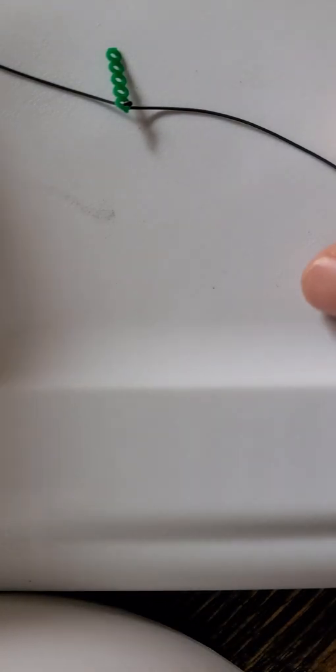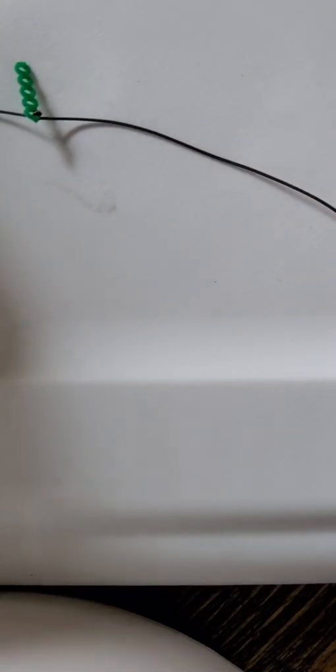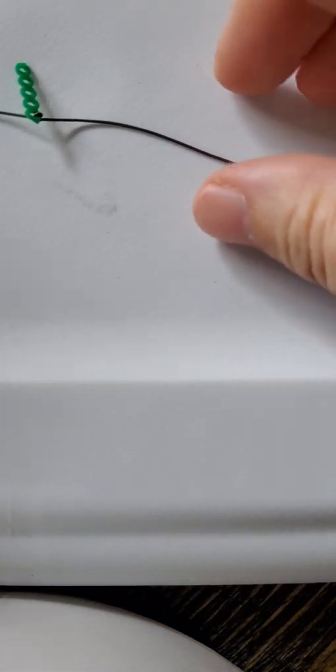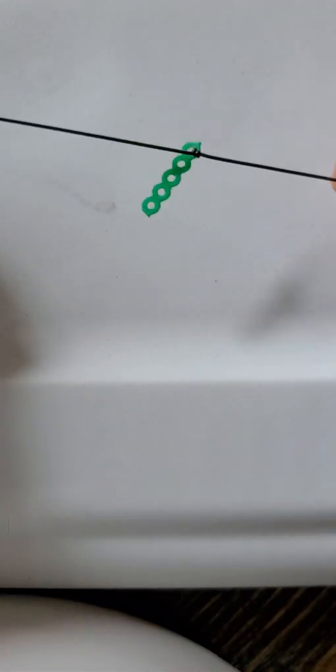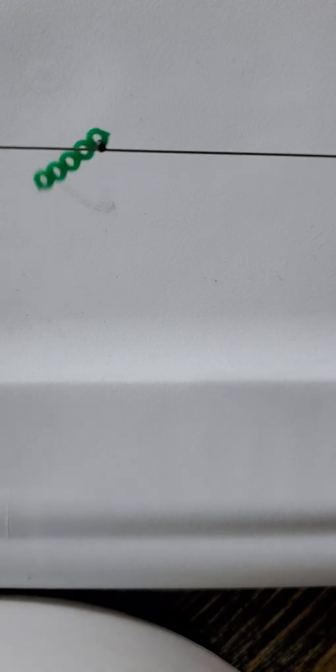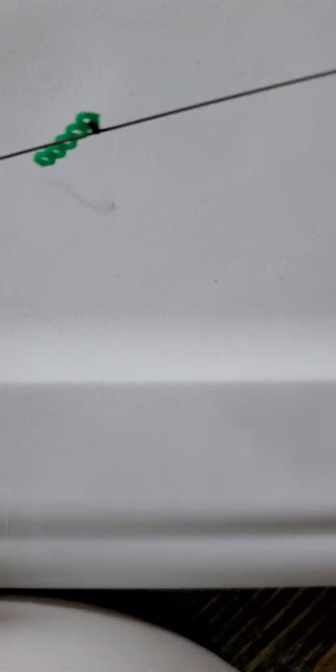And they are two different things, but they look very similar and they function in similar ways. So you can see here, here we go. So see how I'm stretching it, do you see how it rebounded? This is actually like a very thin piece of elastic.